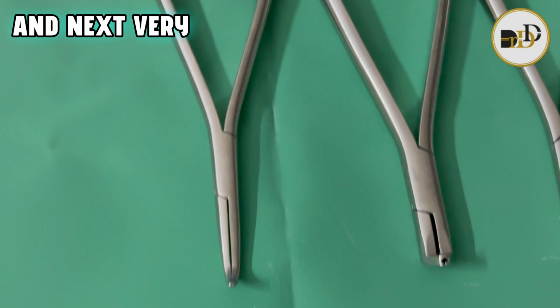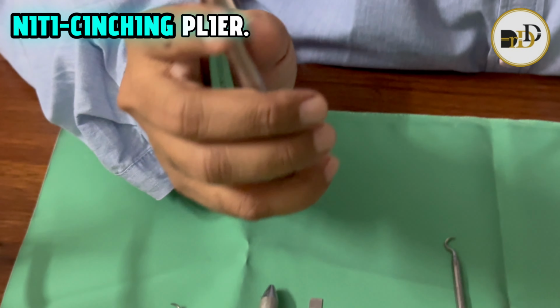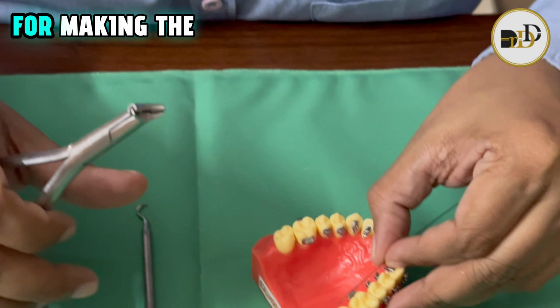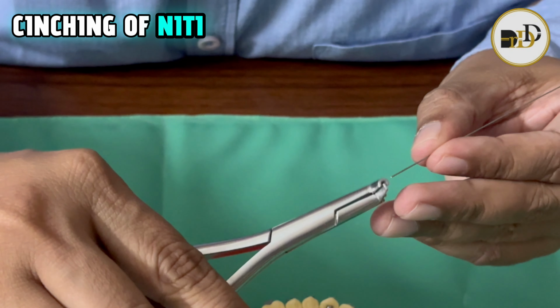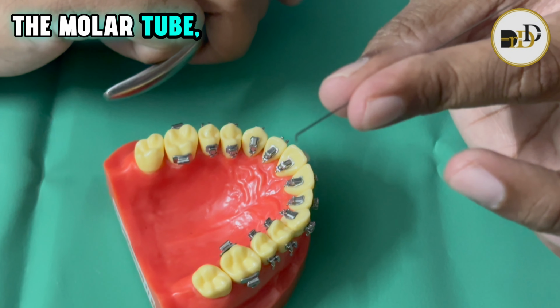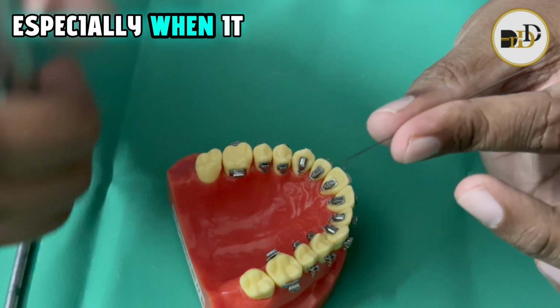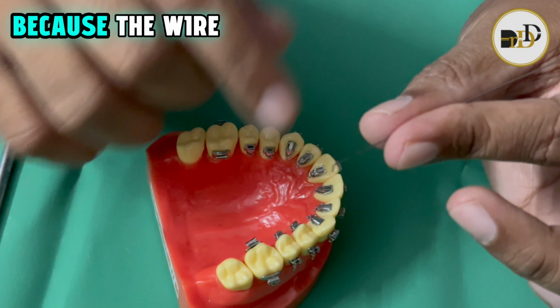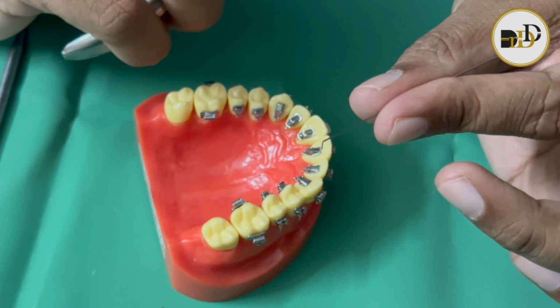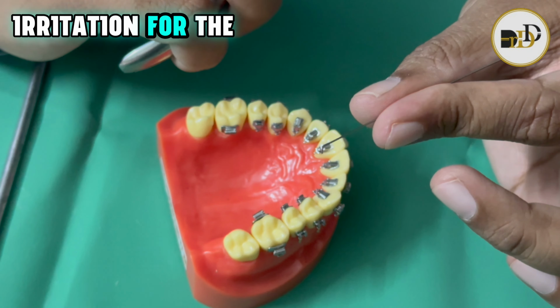And next, a very important instrument when we are doing lingual practice is the nitinol cinching plier. This nitinol cinching plier is useful for making the cinching of nitinol wires distal to the molar tube, so it won't cause any irritation, especially with round wires, because the wire should not come out from the molar tube and it should not hang. If we cut the wire completely, then it may sometimes come out and cause irritation for the patient.